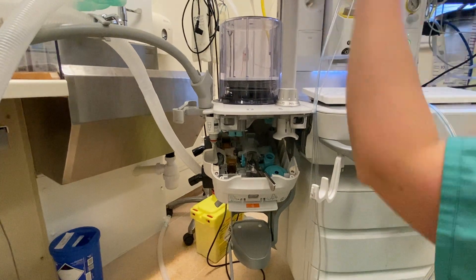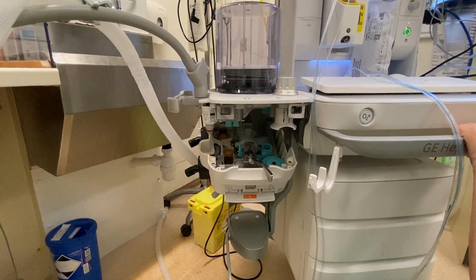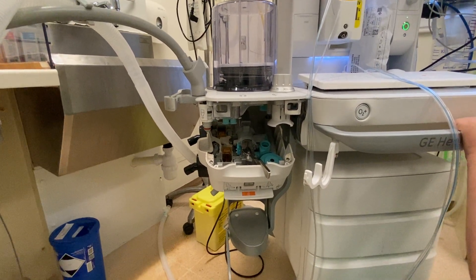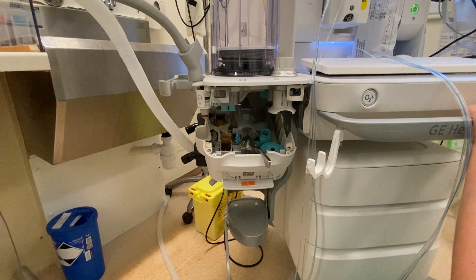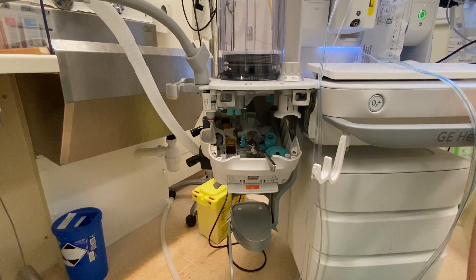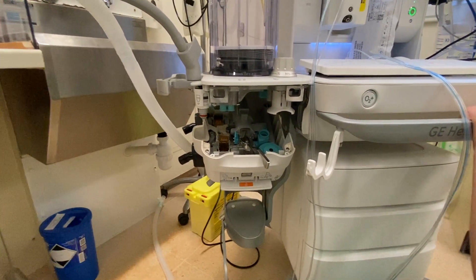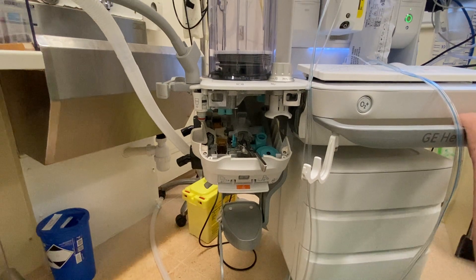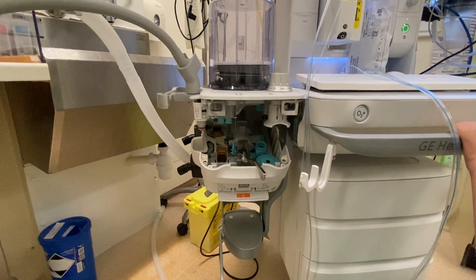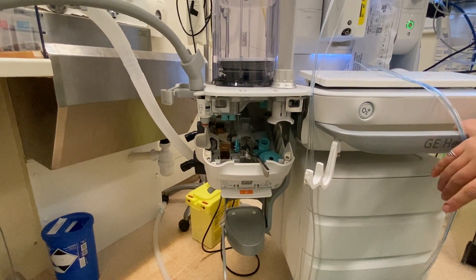Flow meters actually do flow and pressure within the system. This is just calibrating the oxygen fuel cell. Usually the flow and pressure is done monthly, and the O2 cell is done weekly — as it says weekly — and then there's also a monthly O2 cell calibration. Our machine will prompt us to do that.